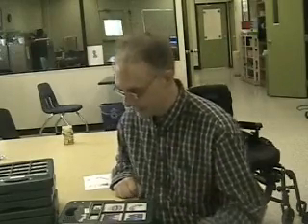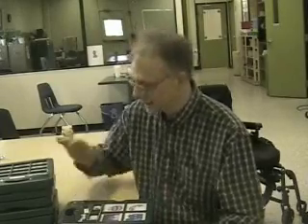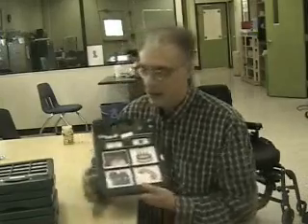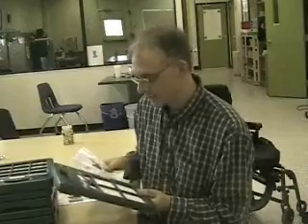Hopefully in a little higher resolution this time, since I'm using a real video camera and not a webcam. And I want to talk to you a little bit about communication boards. Specifically the GoTalk series. I have about 3 different kinds here that I'm going to show you. I have a stack of more than that, but I'll just show you the basic one here, which is called the GoTalk 4.